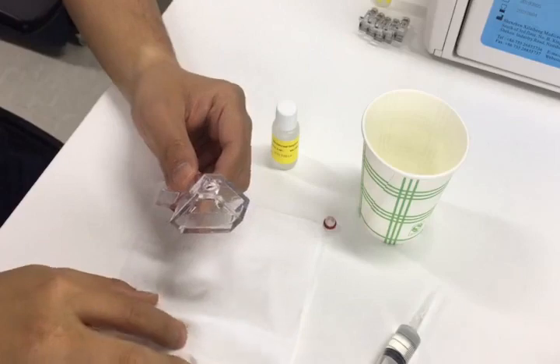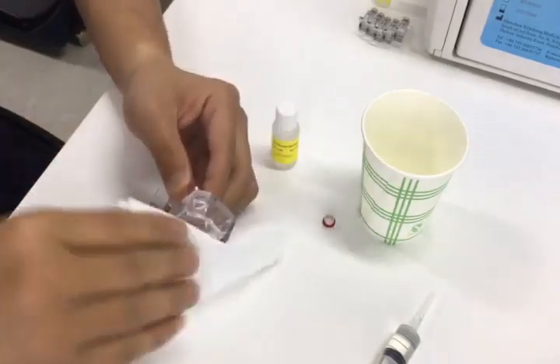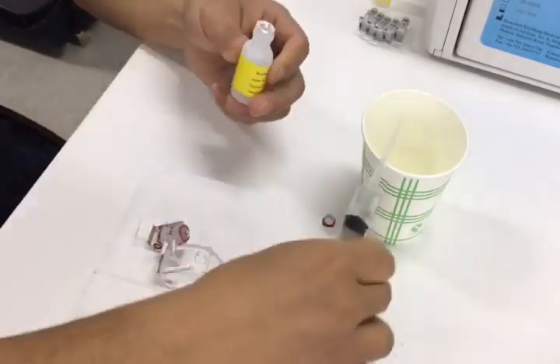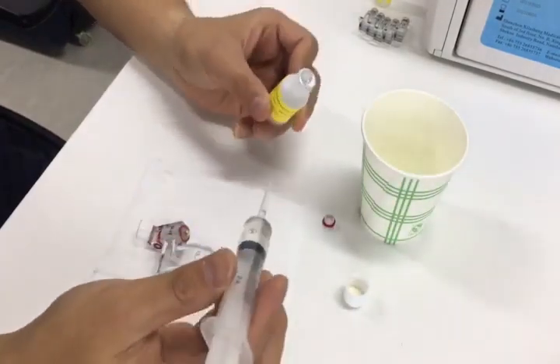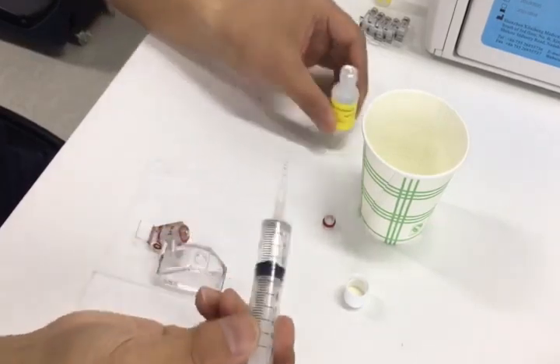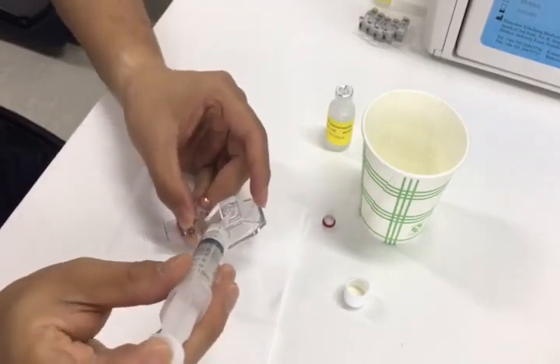If the solution gets out, use the tissue to clean the outside. Then we use the syringe to get some solution from the rough reference electrode internal solution. Then add some solution into the cavity.